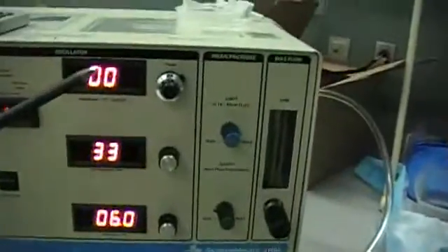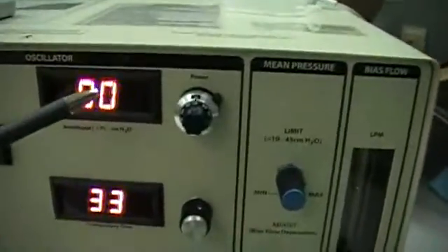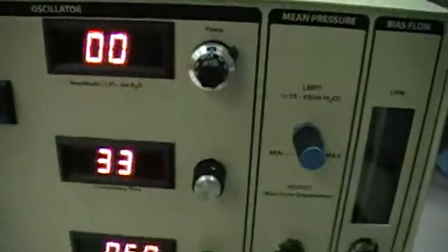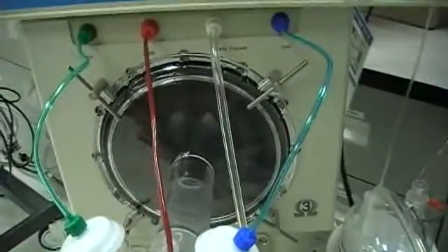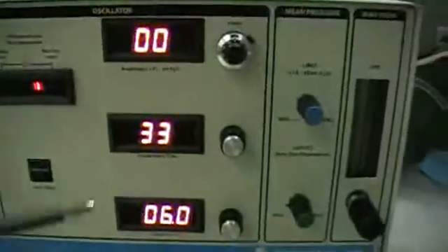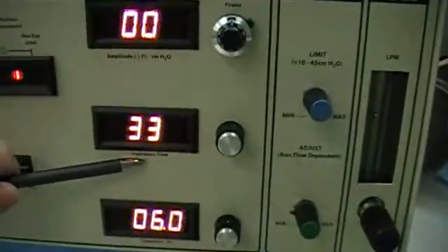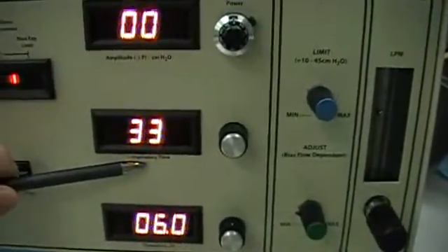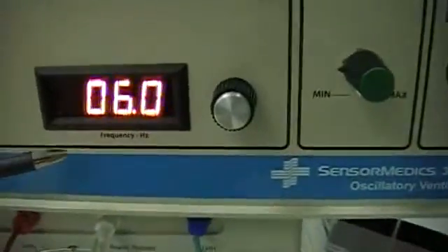When we look up here at the controls, we see that we can set a power — that's the amount of power or amplitude driven to our speaker here, which is where we're getting the oscillation from. We also set the inspiratory time, which is an important element. And instead of a rate control, we set hertz.